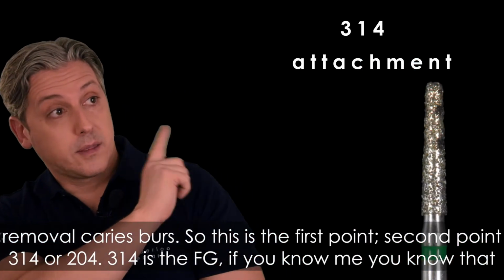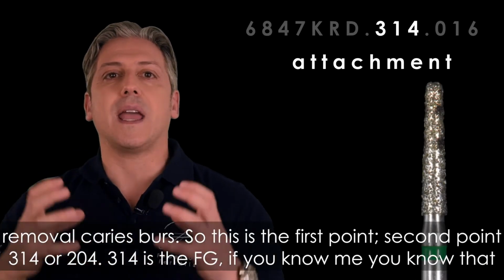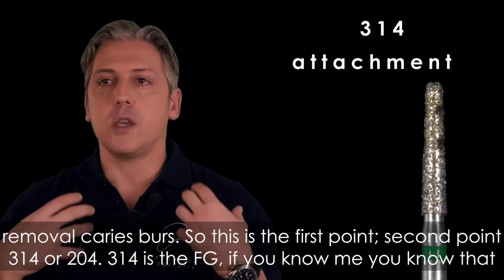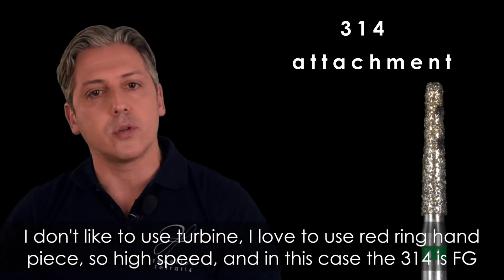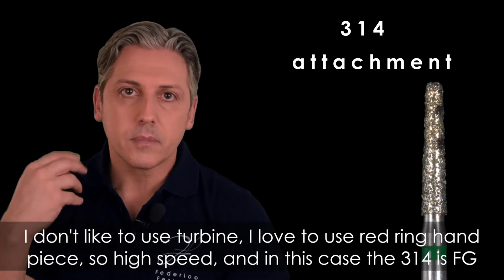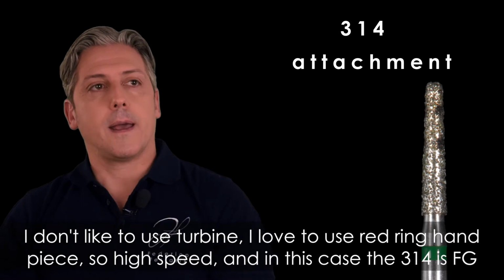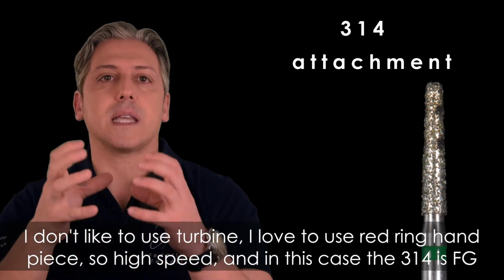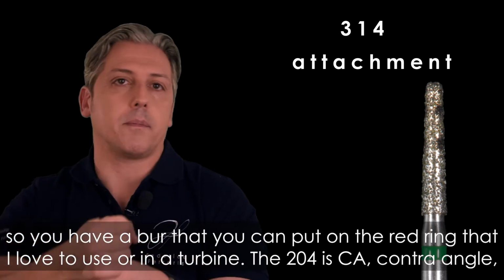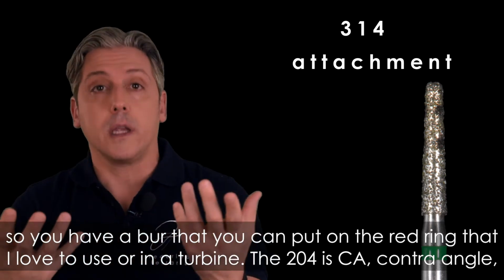Second point, 314 or 204. 314 is the FG. If you know me, you know that I don't like to use a turbine. I love to use the red ring handpiece, so high speed, and in this case the 314 is FG, so you have a burr that you can put on the red ring that I love to use, or in a turbine.